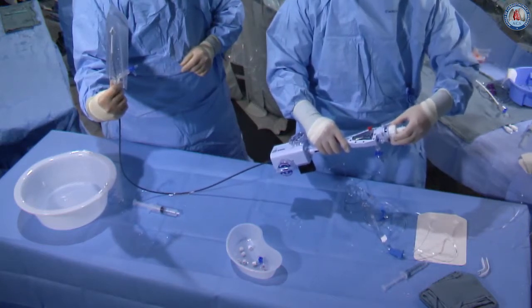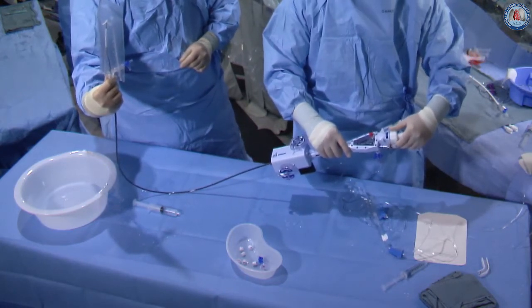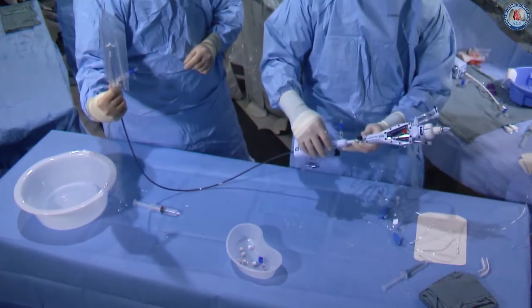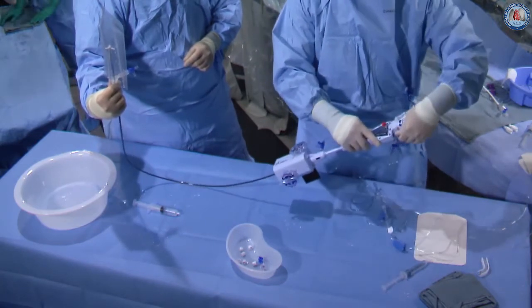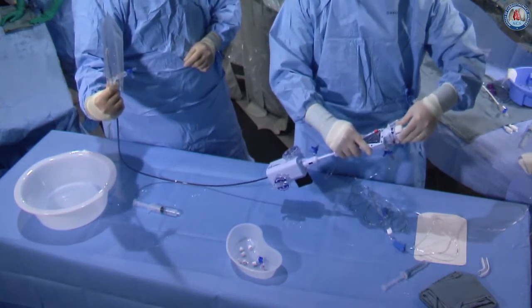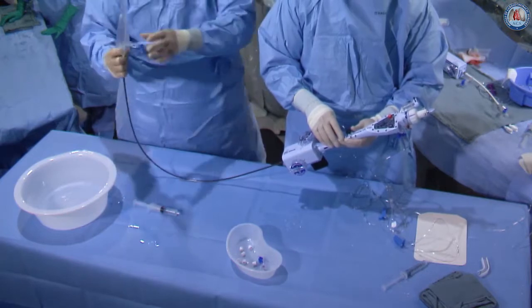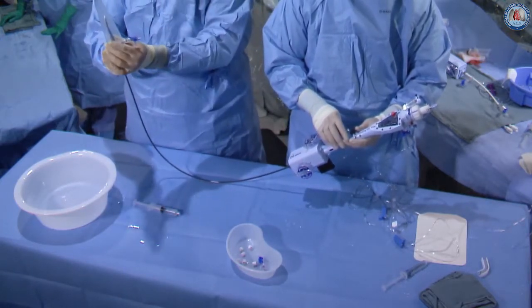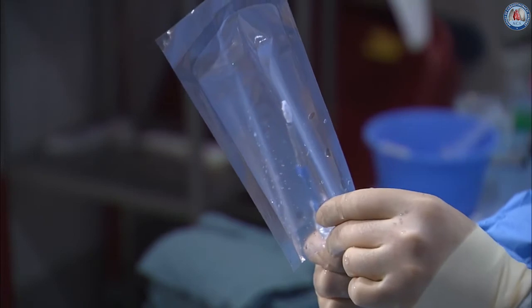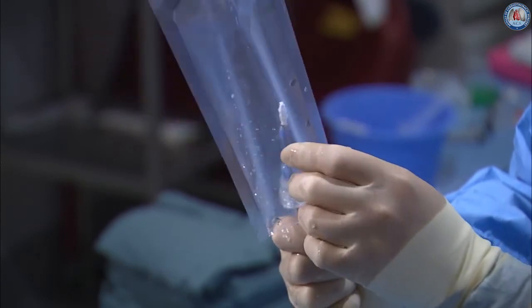At this time you want to raise the grippers, unlock the clip, and then slowly open the device back to 120. Now we're going to pull back the device, lock the clip, and lower the arms with the grippers up. Once it's closed, lower the grippers and insert it into the introducer. For the insertion, first push the clip out of the sheath a little bit, because a lot of times it gets stuck in there — when you pull it back you don't want to be manipulating or pinching the clip so you don't damage the grippers.